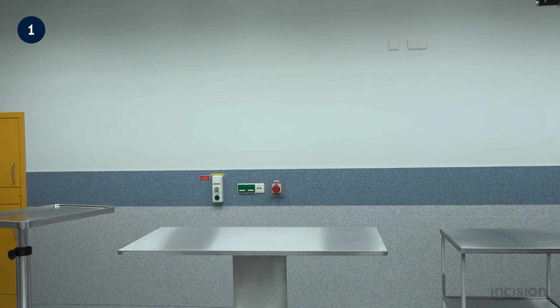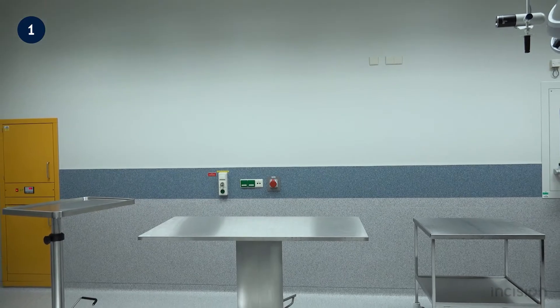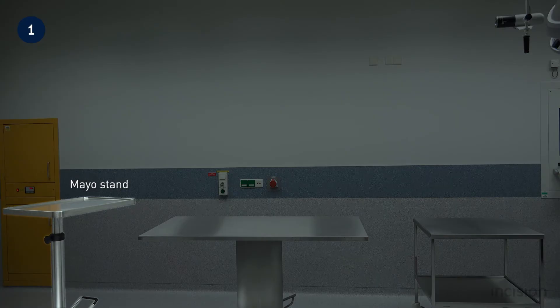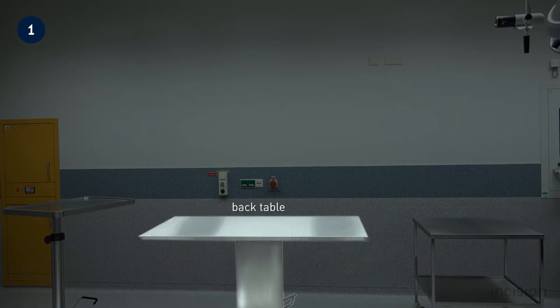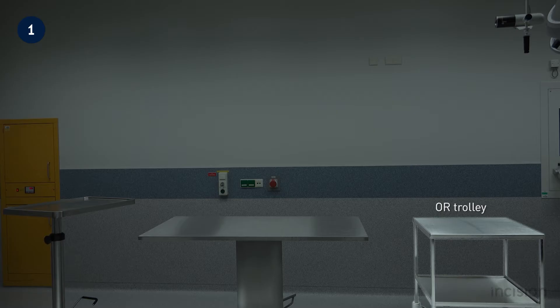Take note of the OR furniture that is required: a Mayo stand, back table, as well as an OR trolley.